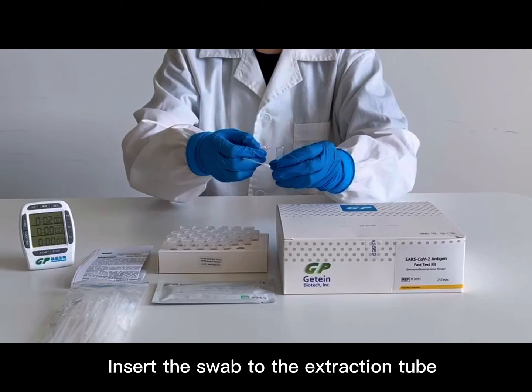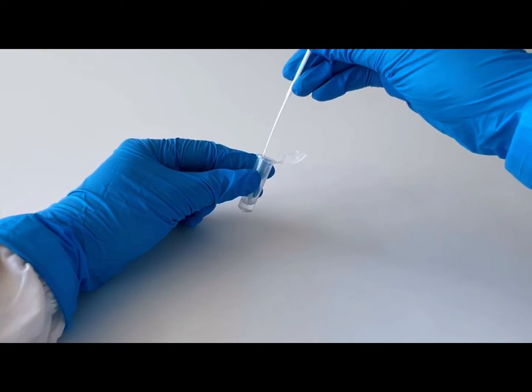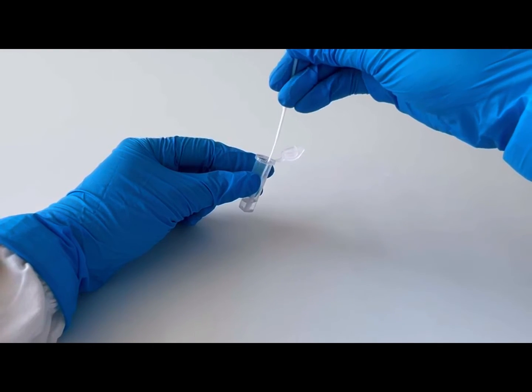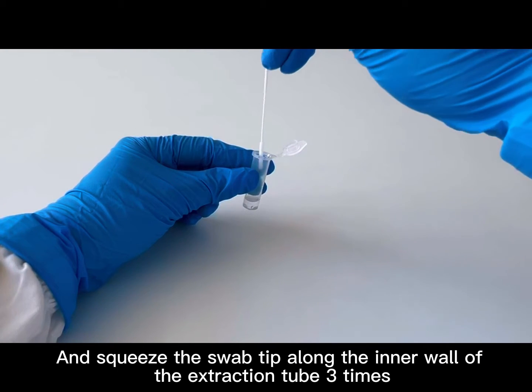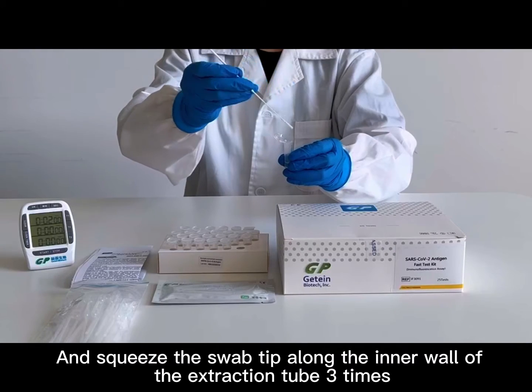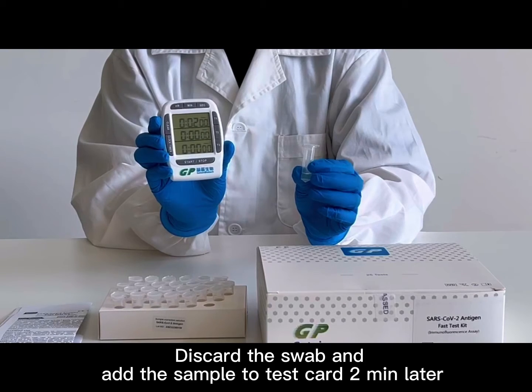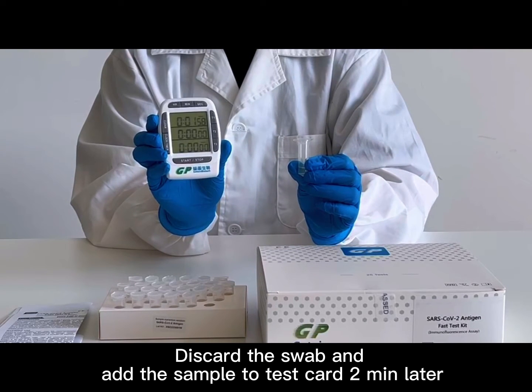Insert the swab into the extraction tube and rotate the swab 10 times in the solution. Then squeeze the swab tip along the inner wall of the extraction tube 3 times. Discard the swab and add the sample to the test card 2 minutes later.